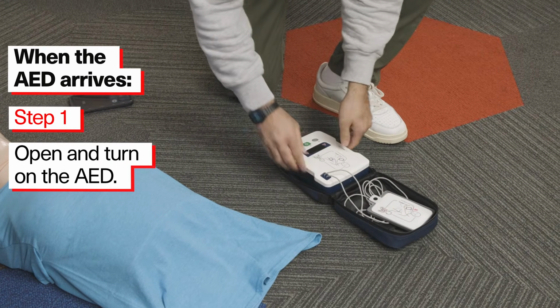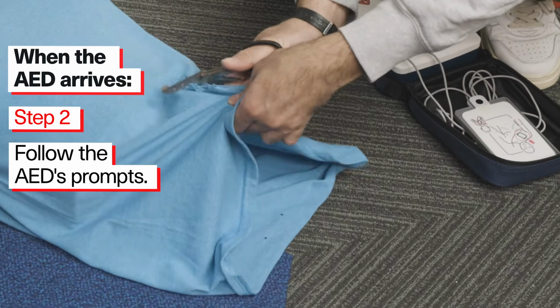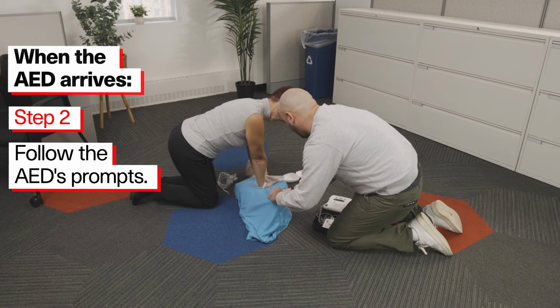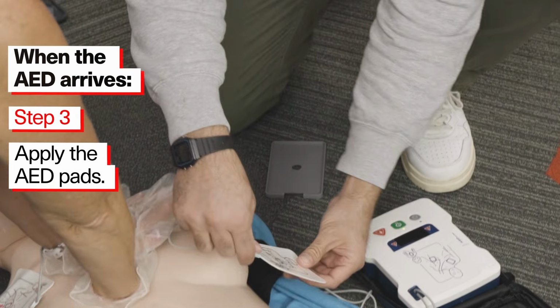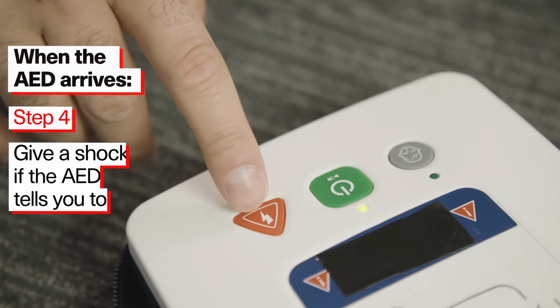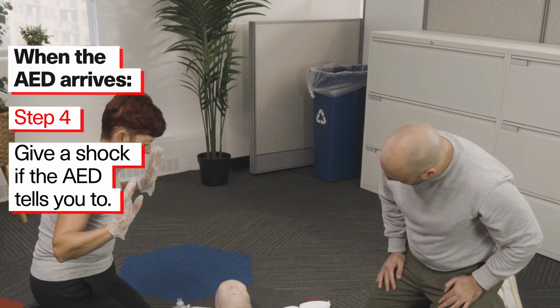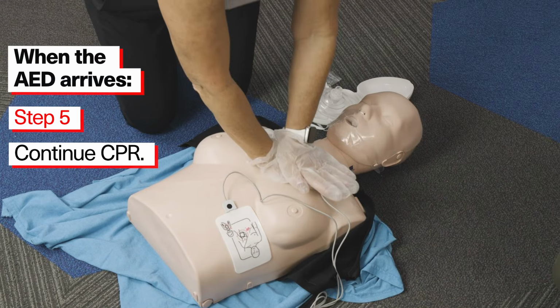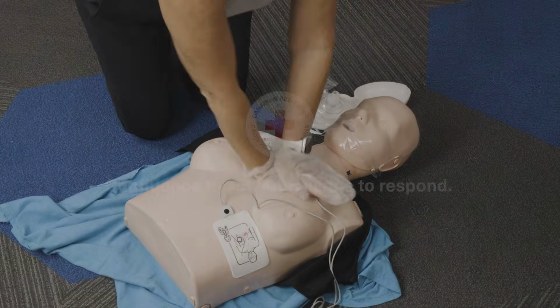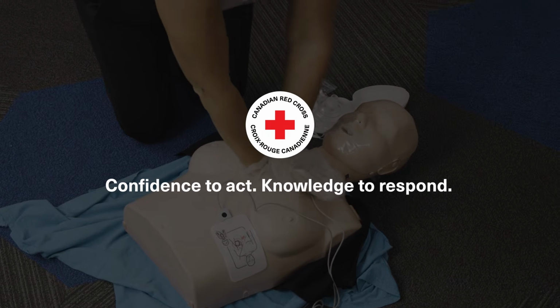Open and turn on the AED. Step 2. Follow the AED's prompts. Step 3. Apply the AED pads. Step 4. Give a shock if the AED tells you to. Step 5. Continue CPR. Confidence to act, knowledge to respond.